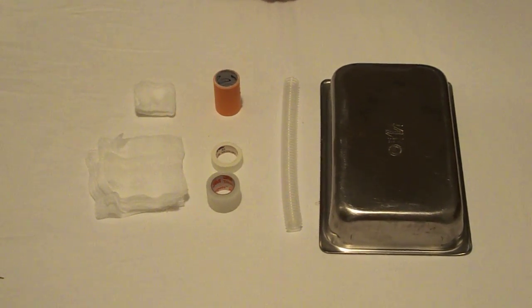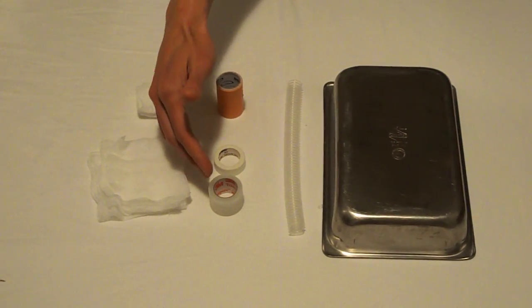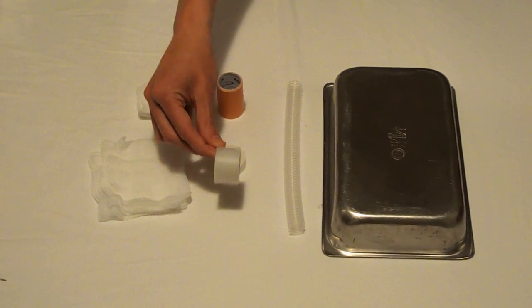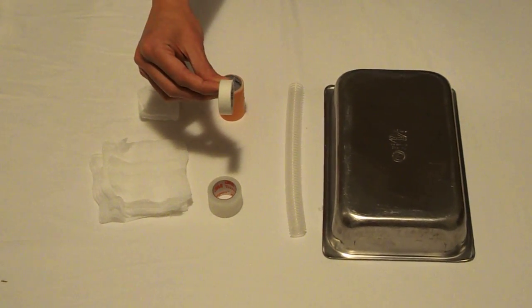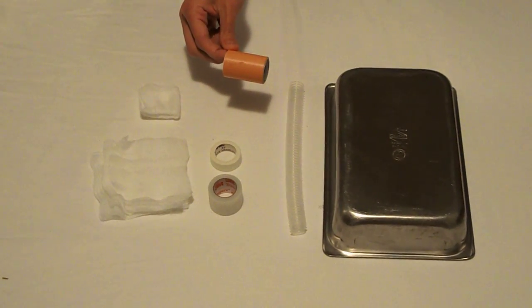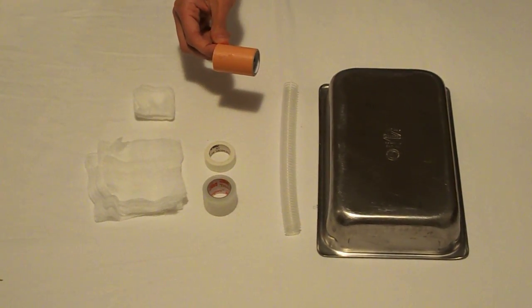You'll also need a few different sized rolls of tape. One, the thyroid cartilage. Here I'm just using some IV tape. Next, a cricoid cartilage, so I'm using a smaller roll of tape. And finally some waterproof equipment tape which is going to act as your skin.